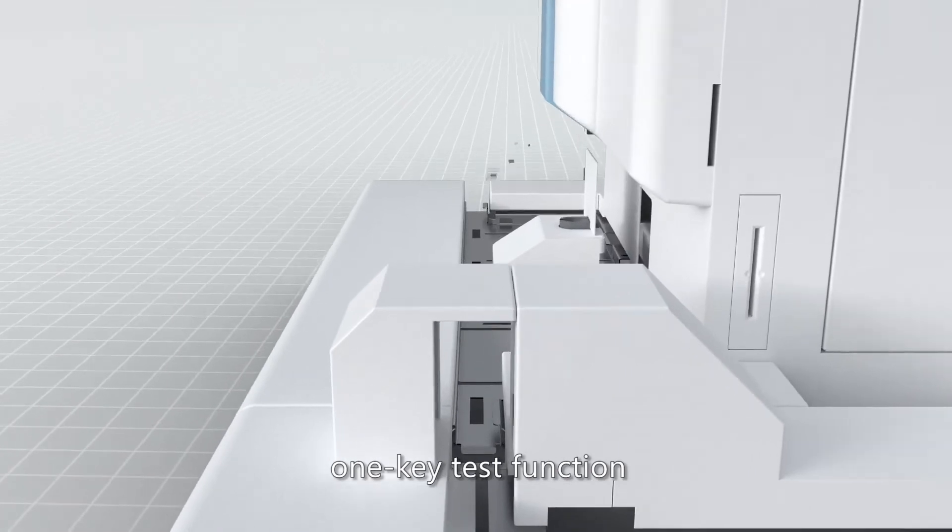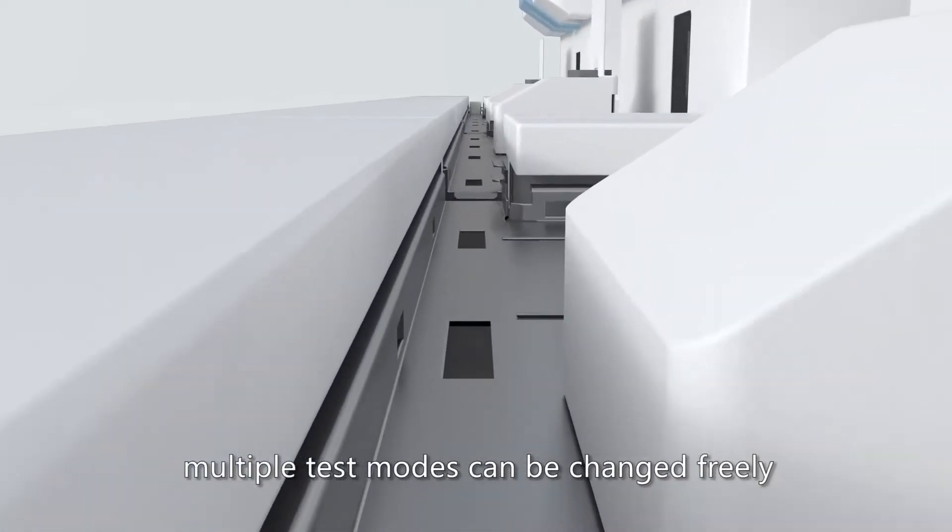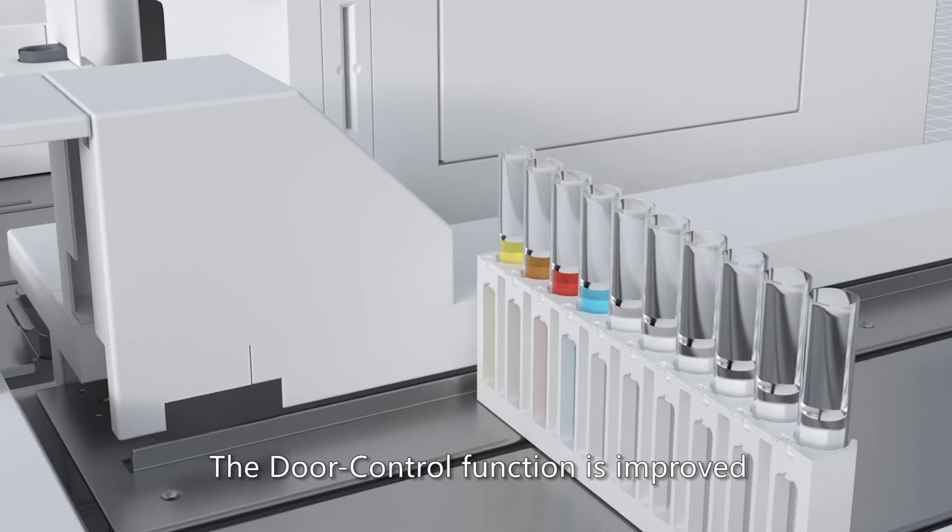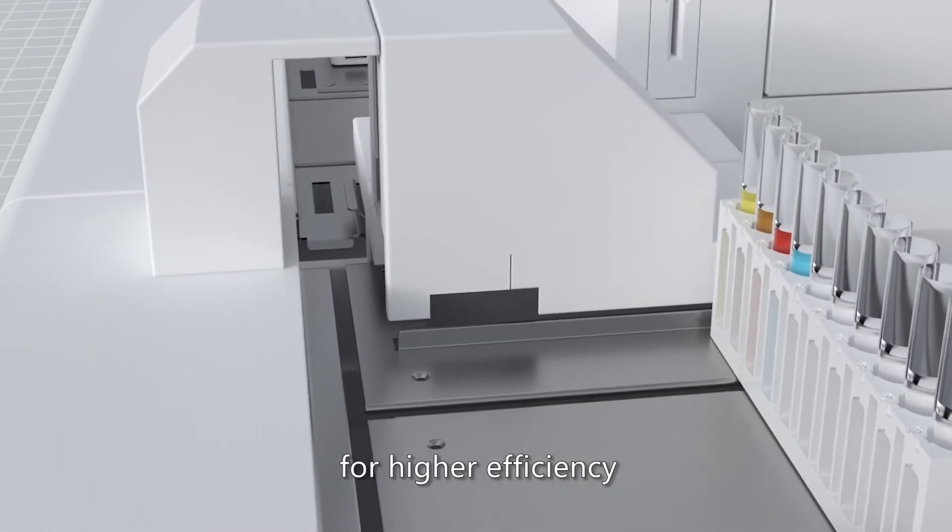User-friendly design features include one key test function. Multiple test modes can be changed freely. The door control function is improved for higher efficiency.